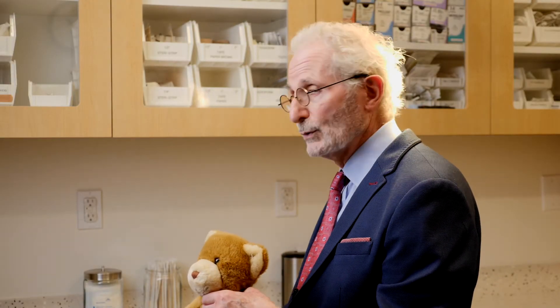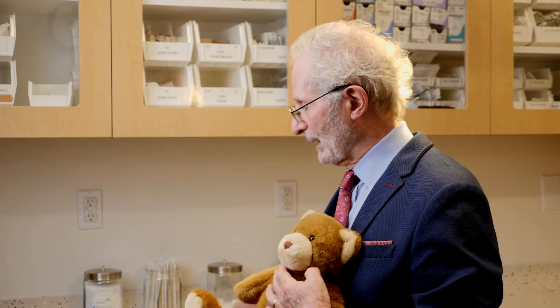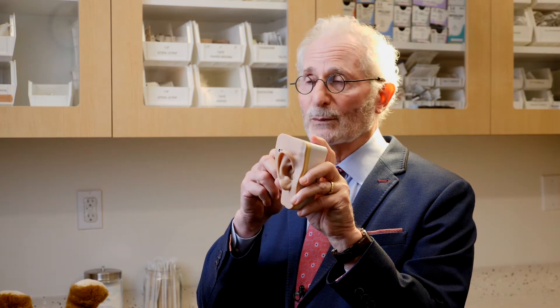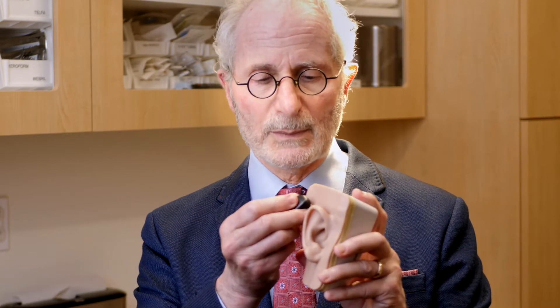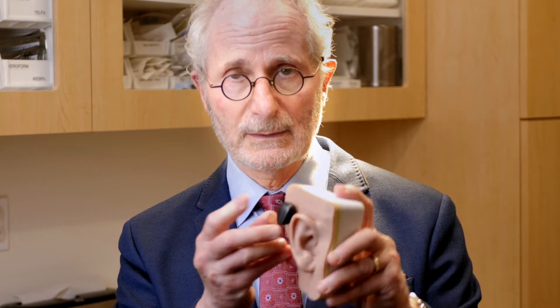Once you have surgery, you can use the hearing aid with an implant. The implant — here's an example of an abutment — you put the implant in the bone, it's only three millimeters in depth, and you attach it to an abutment, and then the hearing aid just snaps on like this.